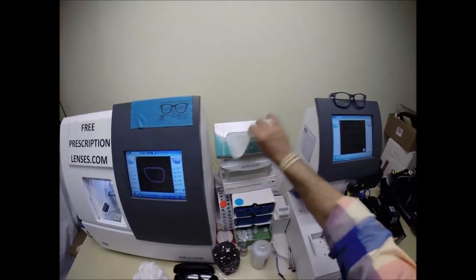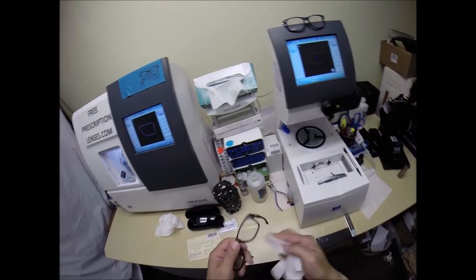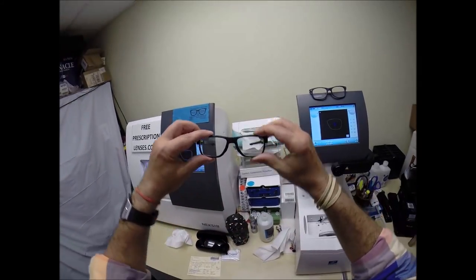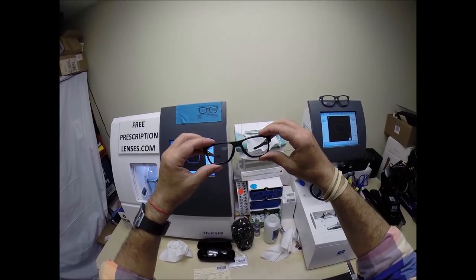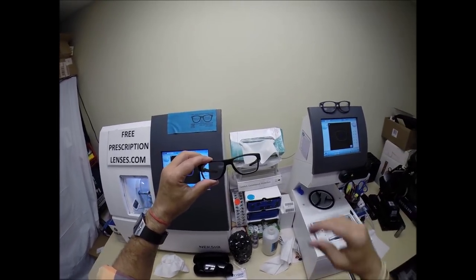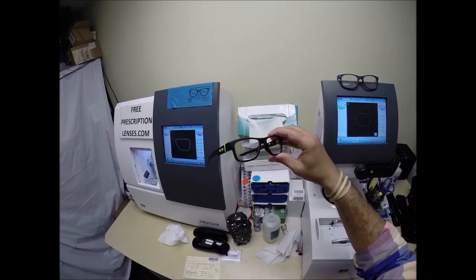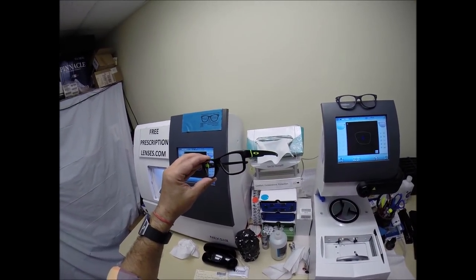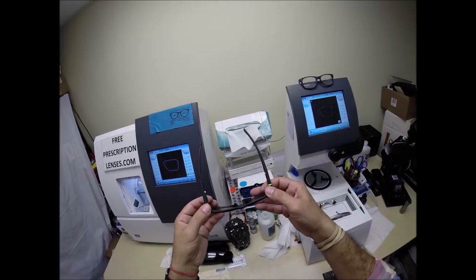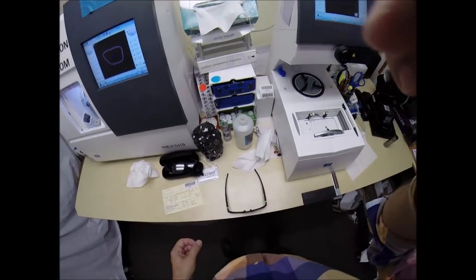There's always free shipping anywhere in the U.S. When you get these in the mail, there's a small chance they could fit too loose or too tight. However, there's an 80% chance that one side is going to sit higher than the other — that's because 80% of people have one ear that is higher than the other. But 99% of all optical shops do free adjustments if you ask them. I'm going to get these in standard alignment, also known as a three-point stance. The three points are the two temples and the bottom of the frame being three. I set them down on the counter and press down.